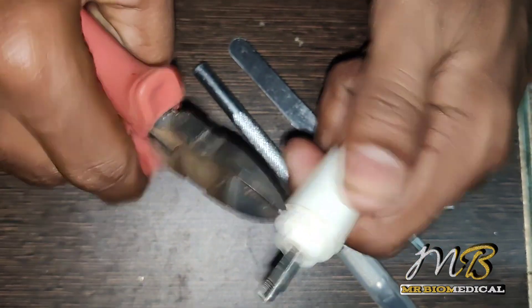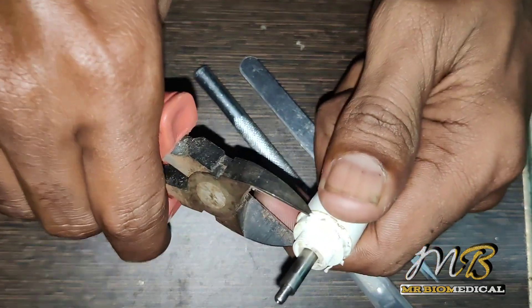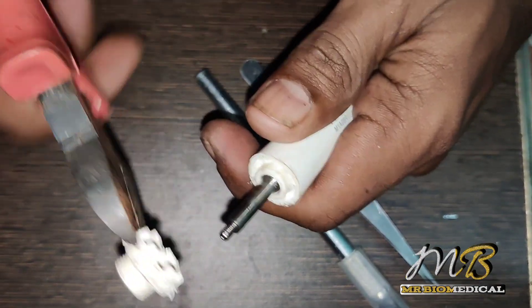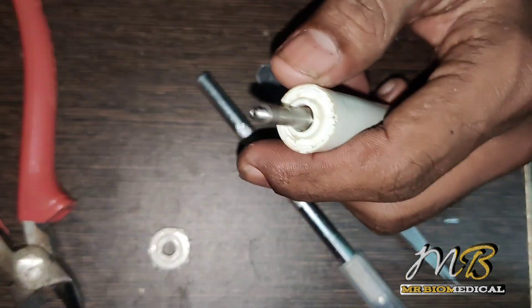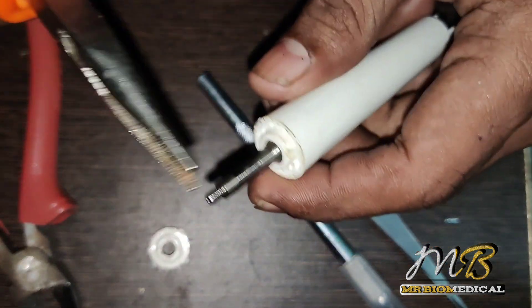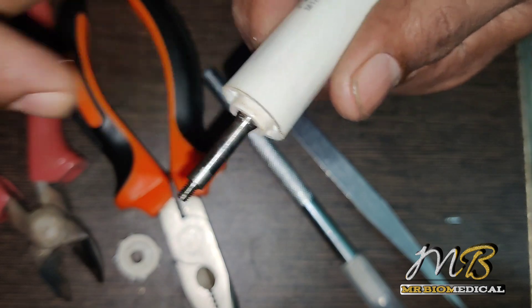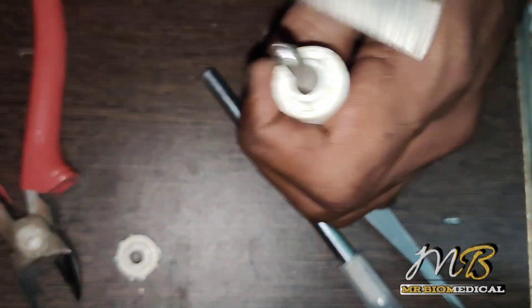I just want to see what's inside and how it works. People are saying this is an ultrasound scaler, so I just need to know what is inside. I think this is some kind of vibrator or something — I don't know exactly what it is, but the material is good, maybe stainless steel. I'm not sure how to open it so I'm just tapping it from the top.